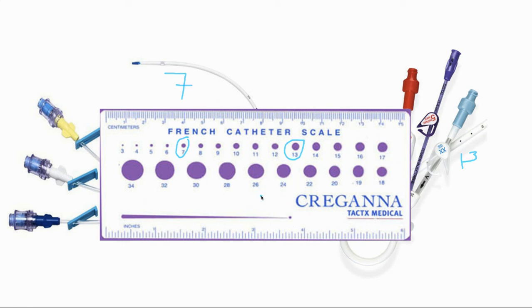For the biggest sheaths — things like ECMO — those can get as large as 22 or 24 French, and those need to be surgically removed. So to recap: French — bigger number is bigger tube; gauge — bigger number is actually smaller, because remember we're stretching that wire. And yes, we use both systems when talking about lines.